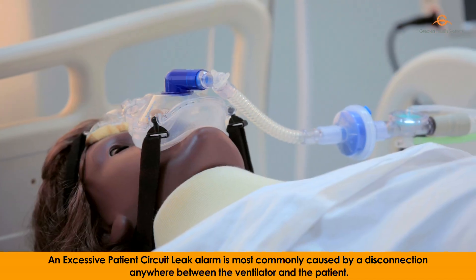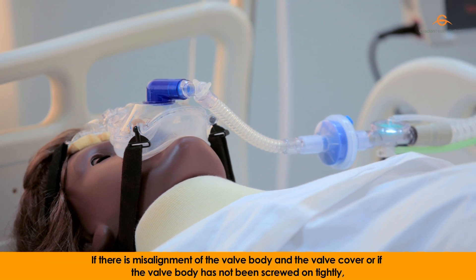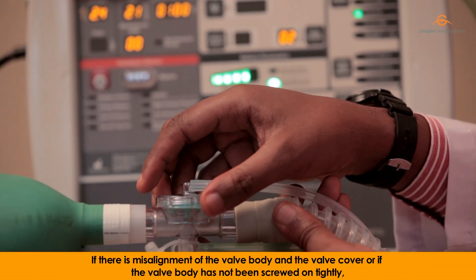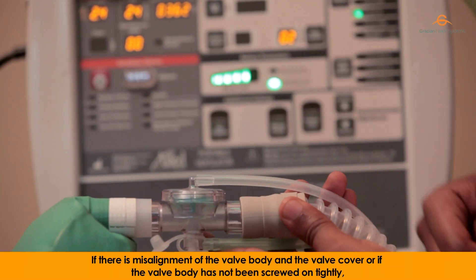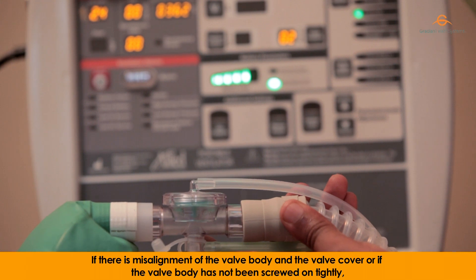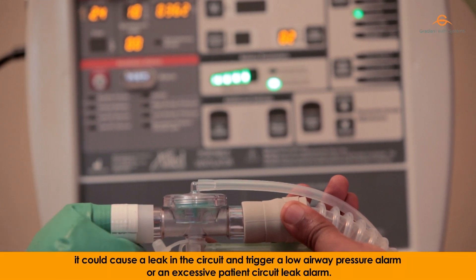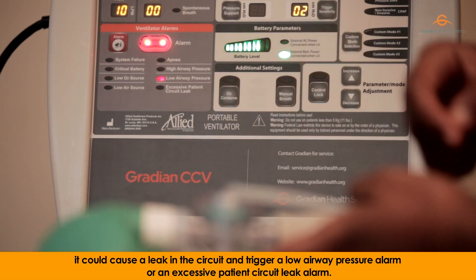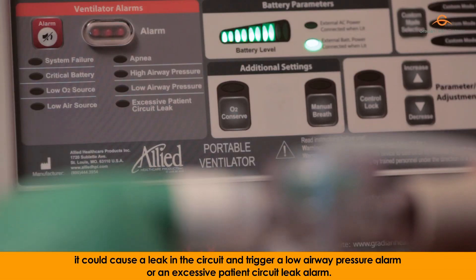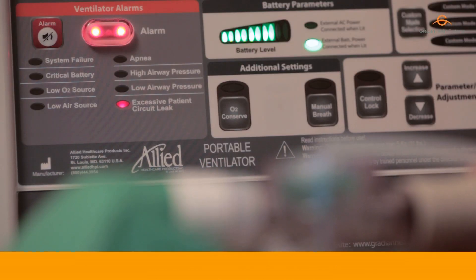An excessive patient circuit leak alarm is most commonly caused by a disconnection anywhere between the ventilator and the patient. If there is a misalignment of the valve body and the valve cover, or if the valve body has not been screwed on tightly, it could cause a leak in the circuit and trigger a low airway pressure alarm or an excessive patient circuit leak alarm.